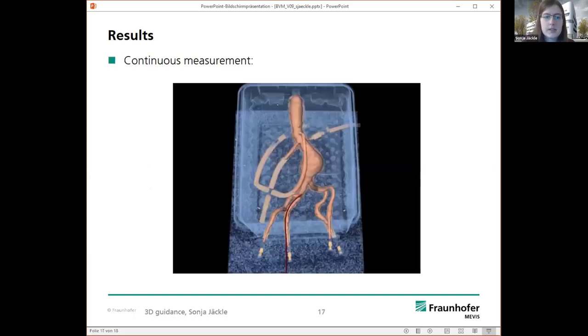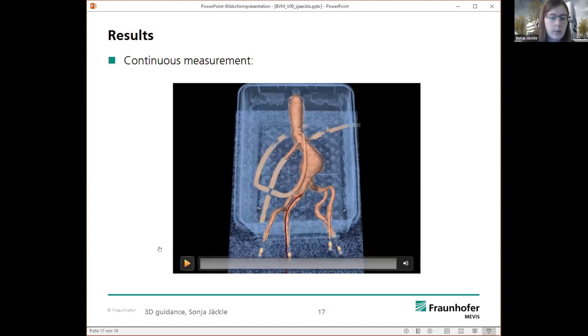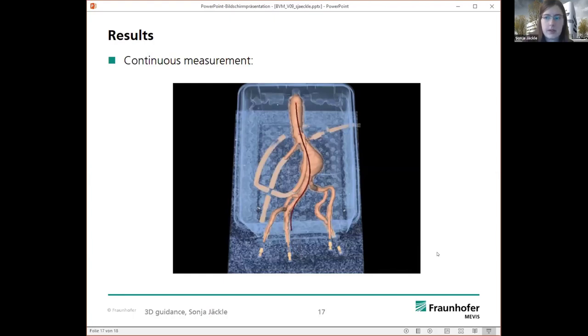And last but not least, I want to give you an impression how this could look like. Here we have the continuous measurement, where the stent graft system is inserted. This is replayed with five times speed, and it shows us how the stent graft system is moving inside the vessel, and everything is working fluently, and it shows us that the guidance is real-time capable.